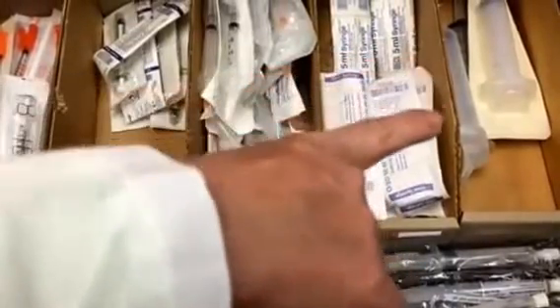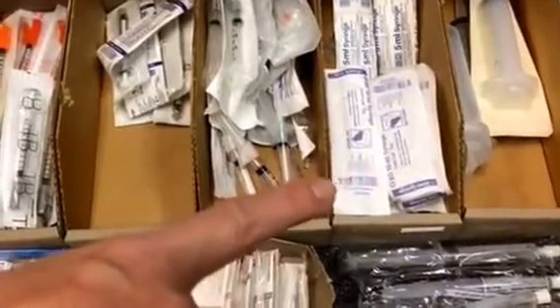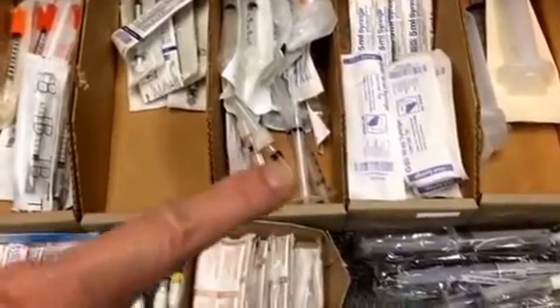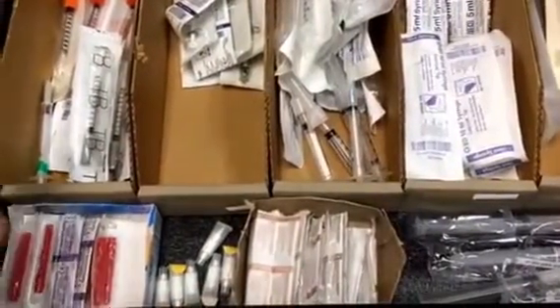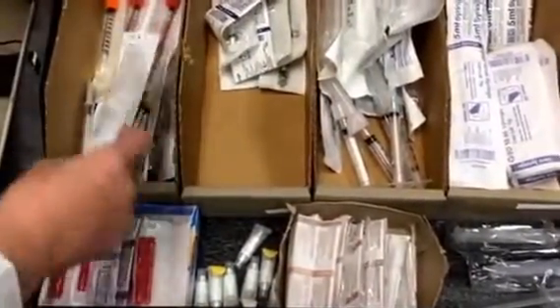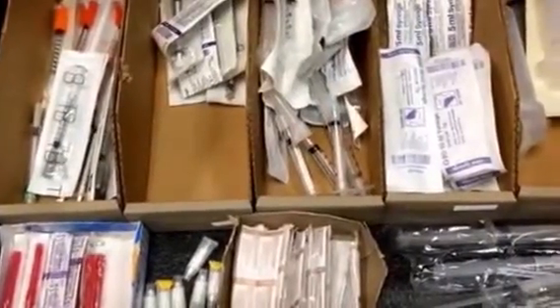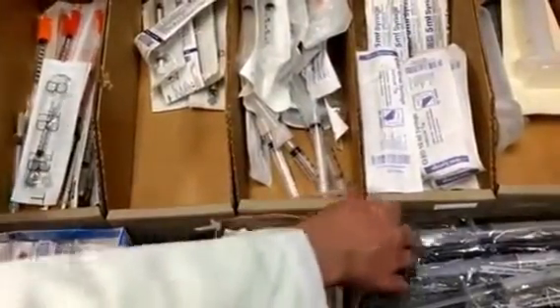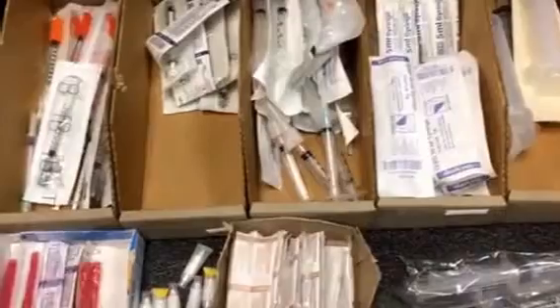The very end has larger size syringes, which you may sometimes use for your NG tube and for irrigations. RN students, you want to make sure that in this drawer we have a TB syringe and also an insulin syringe, so you need to make sure which ones you need. And we have pre-filled saline flushes, and these are available in this drawer as well.